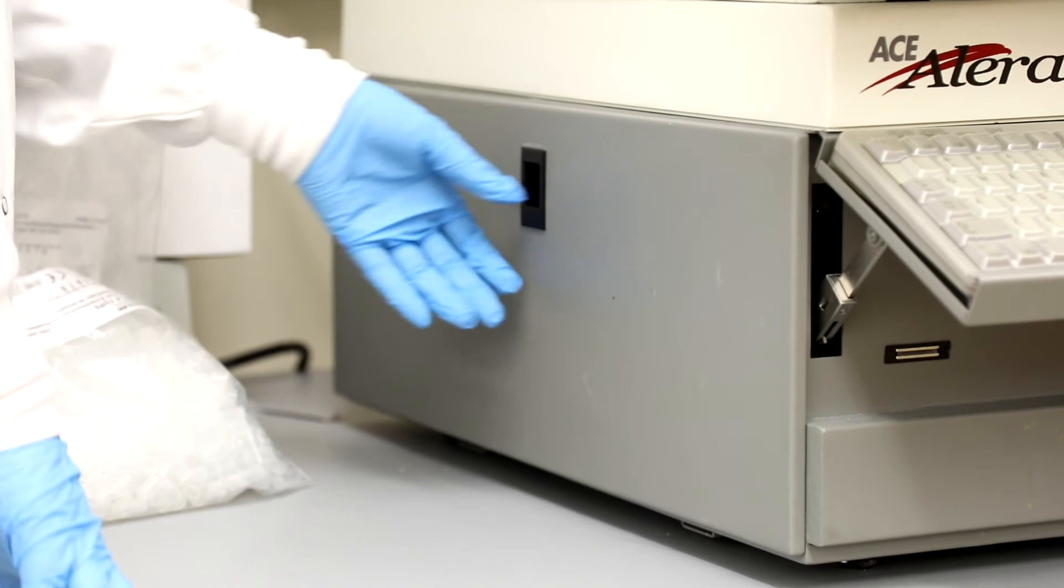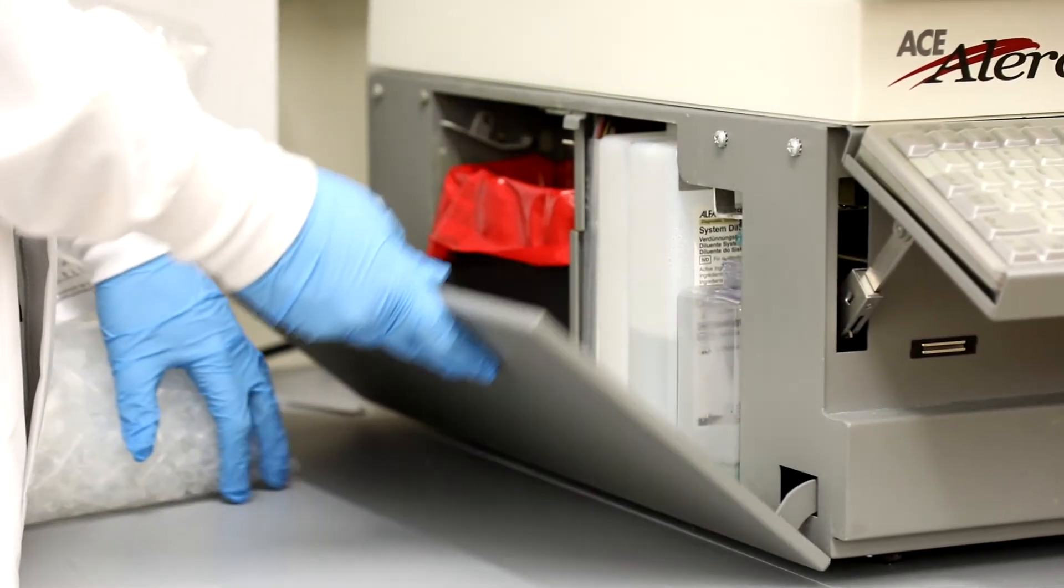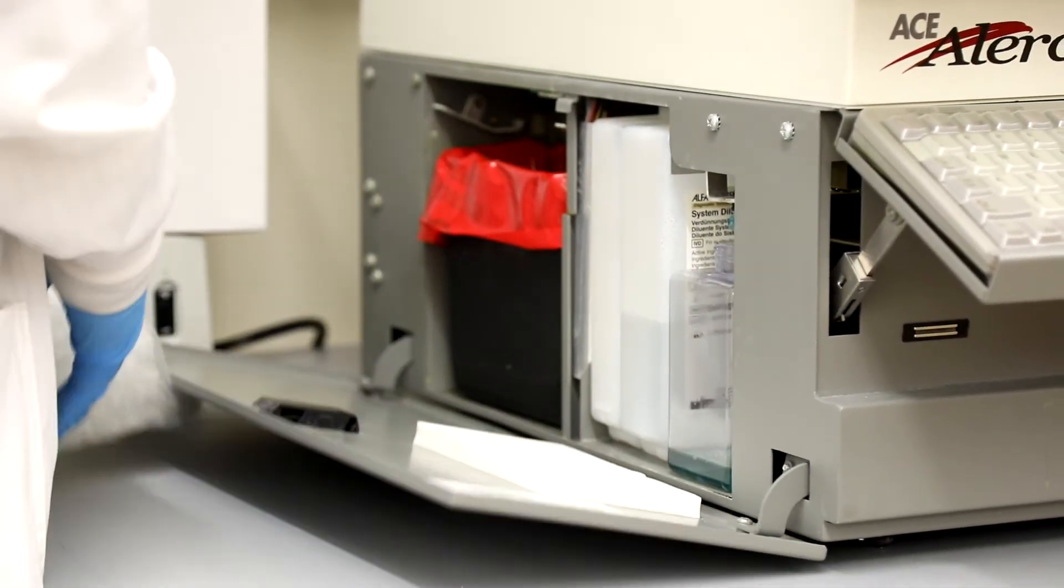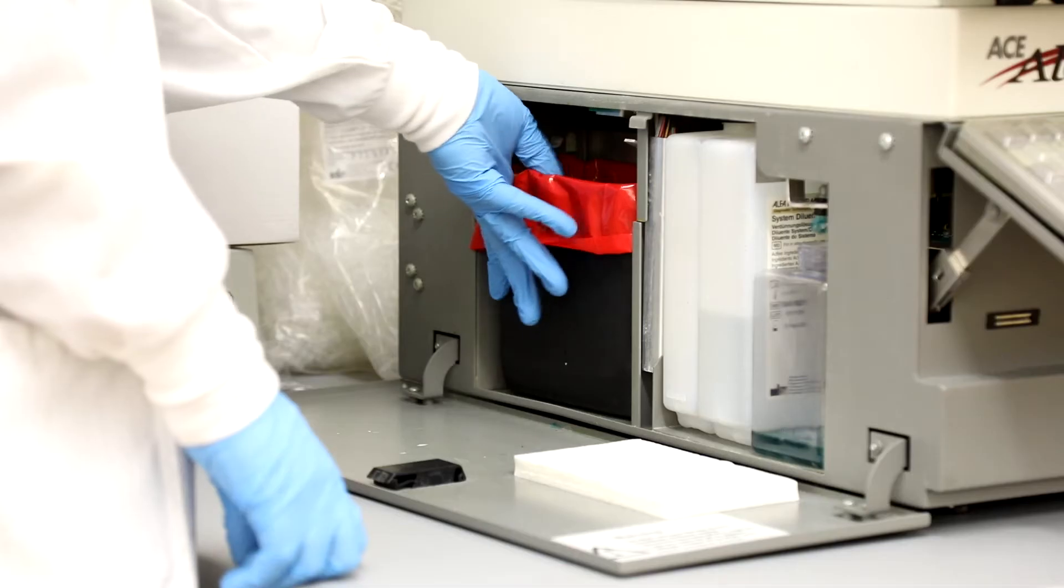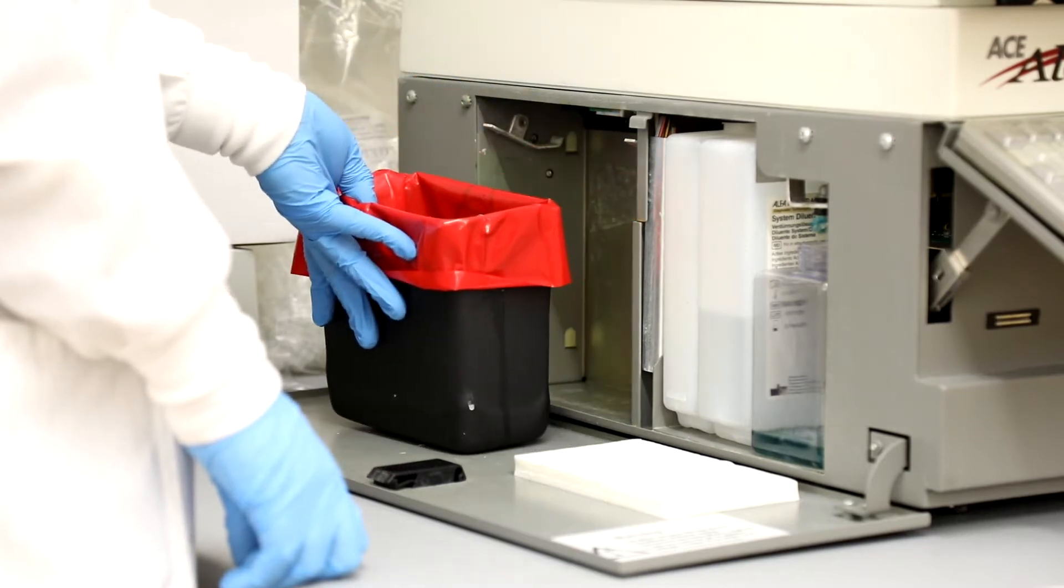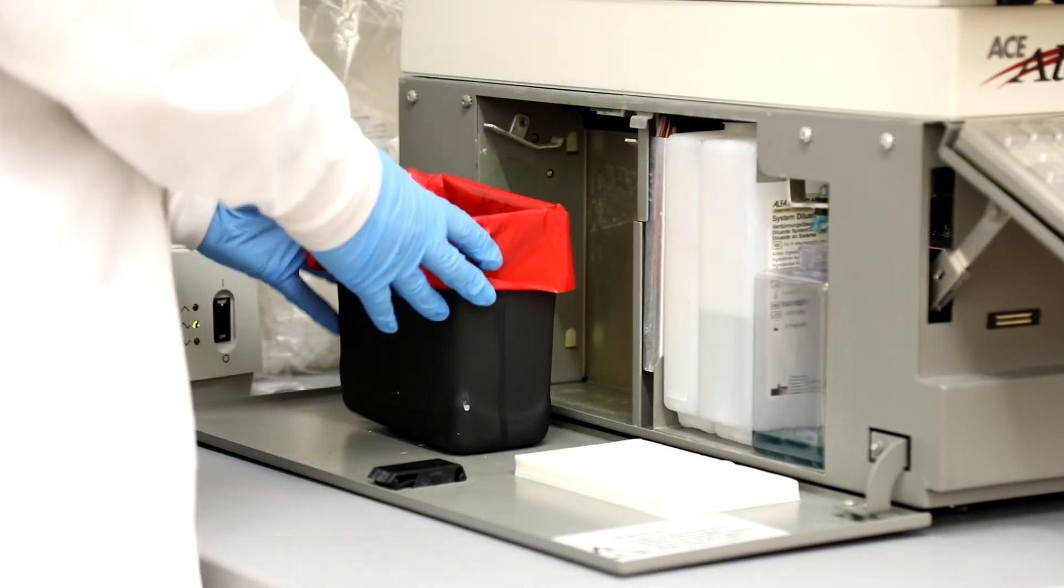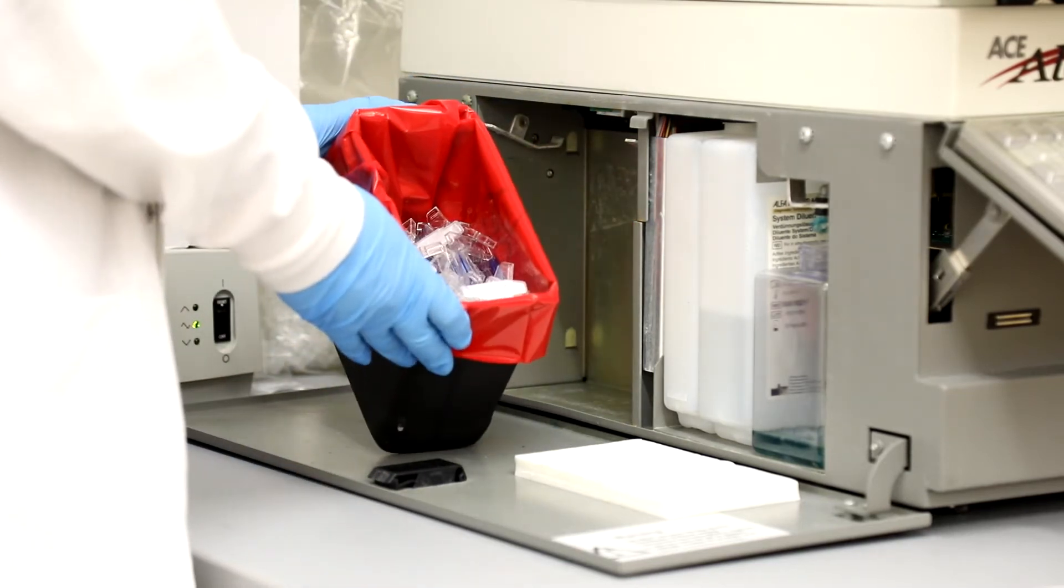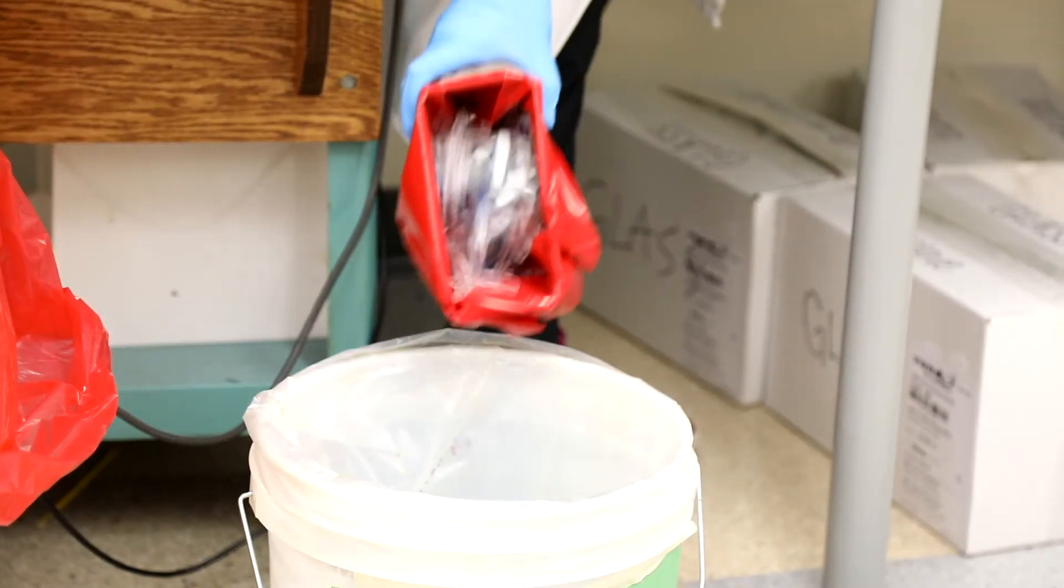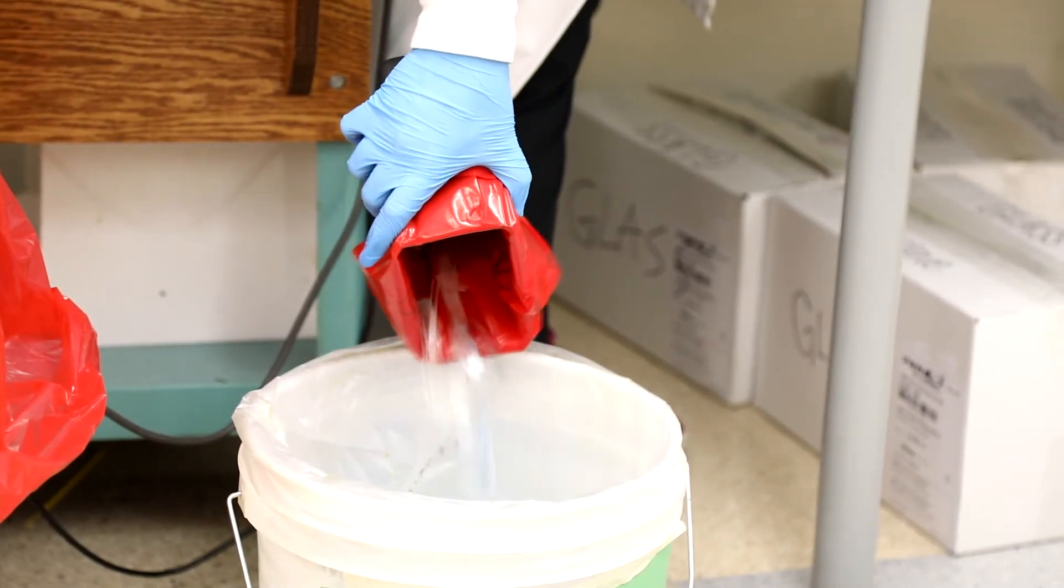Select Escape to return to the main menu. The last part of Maintenance will be to check the fluid levels. Open the side compartment to check the waste container. If it is full of cuvettes, take it out and empty it into the green waste bins.